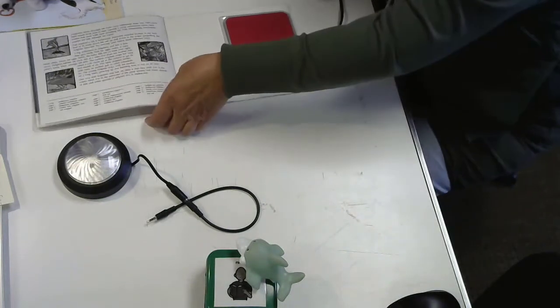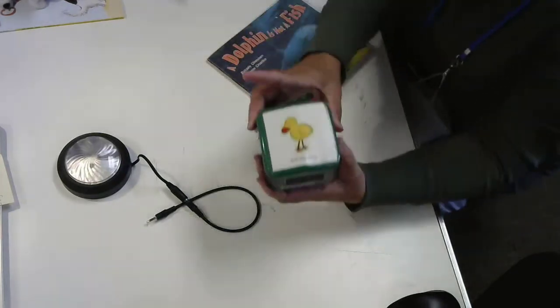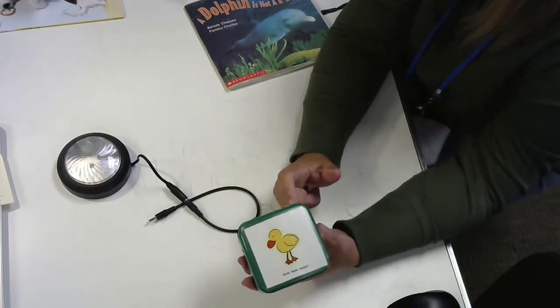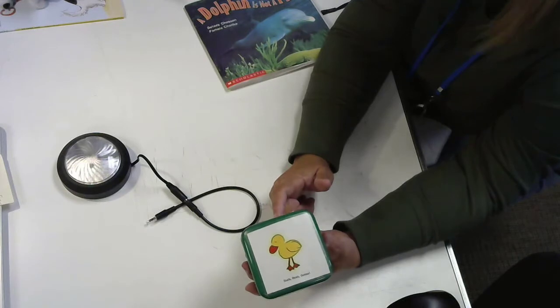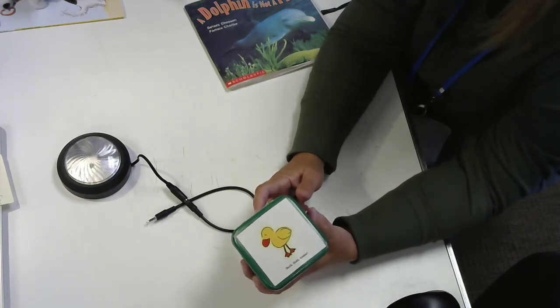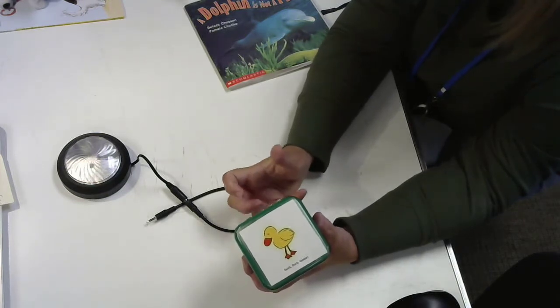The randomizer looks the same in shape and has a lot of the same features. We can plug in a switch. We have the opportunity to do the relay. And oh, and I forgot, on both of the devices, there's also a jack for an external speaker. And so if you're in a noisy environment, let's say they're using it in a play or something, you may need to plug in that external speaker and give it the volume a little more oomph there.